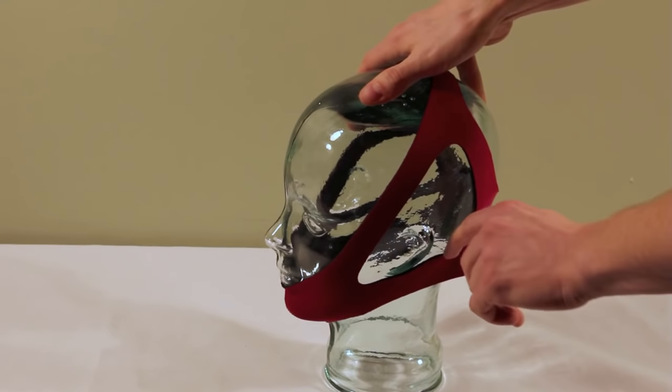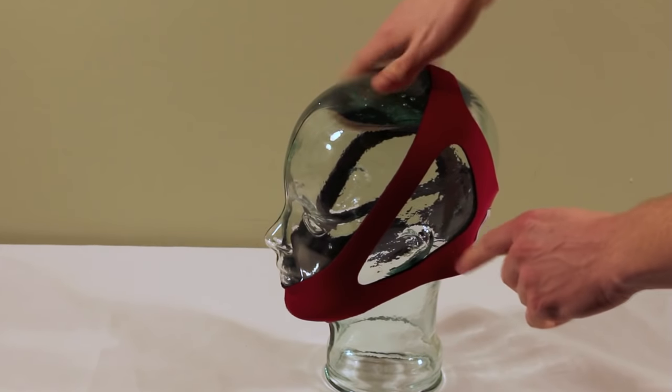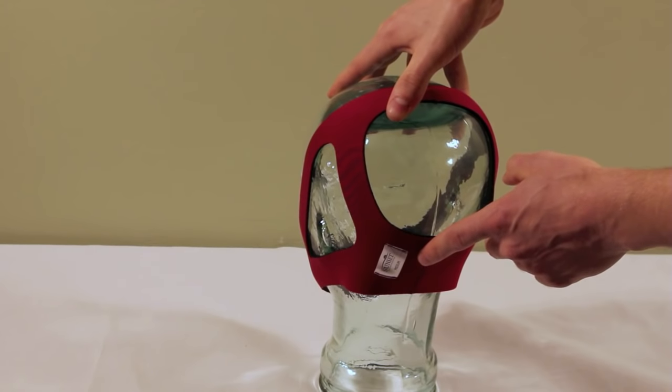You will also want to check the side to make sure that the ears are not being touched and then again ensure that the tag is in the back.